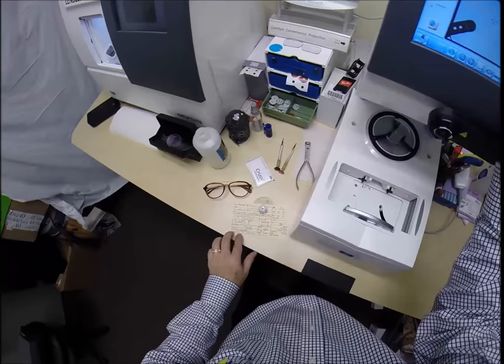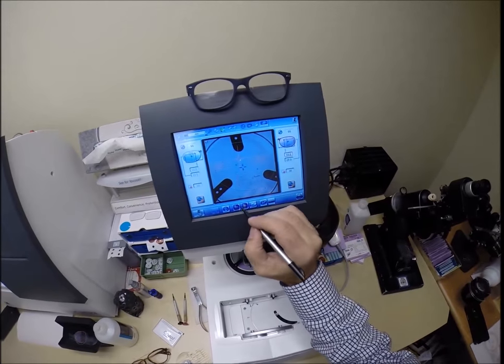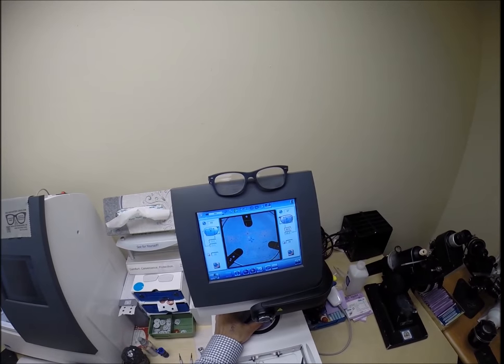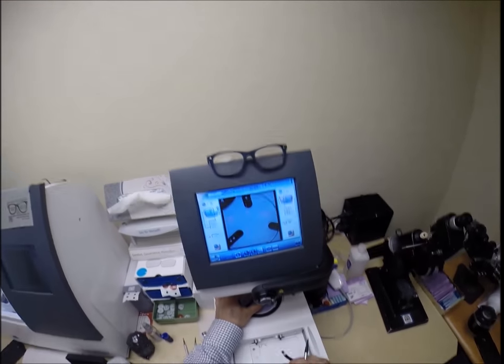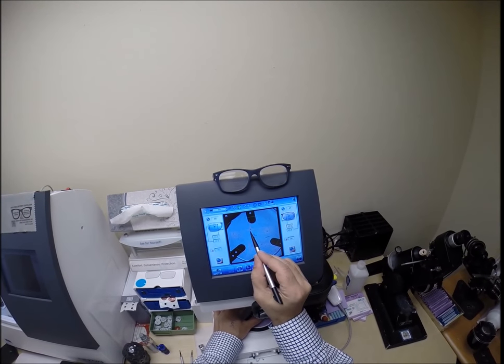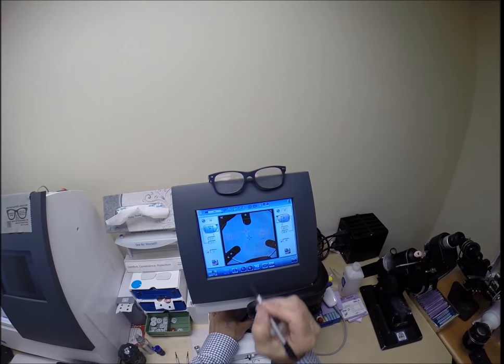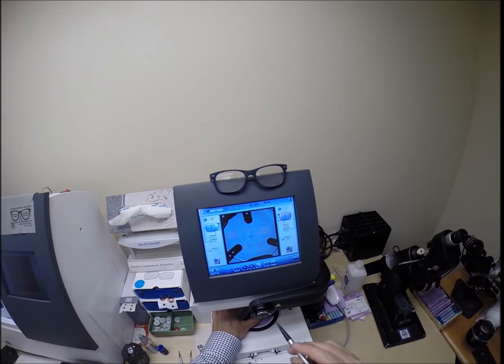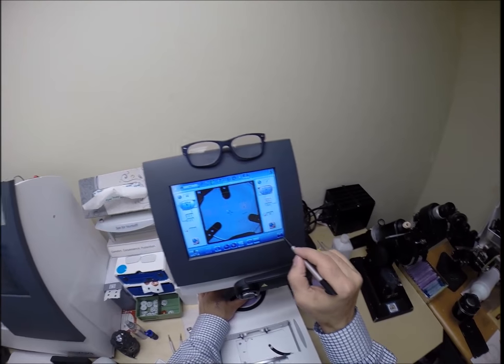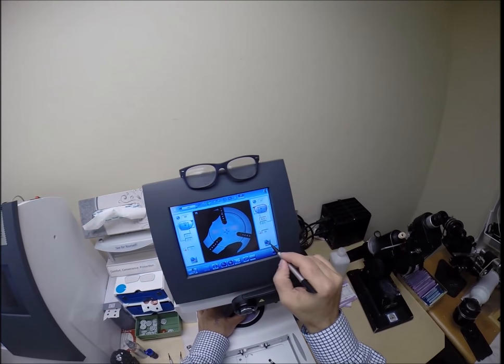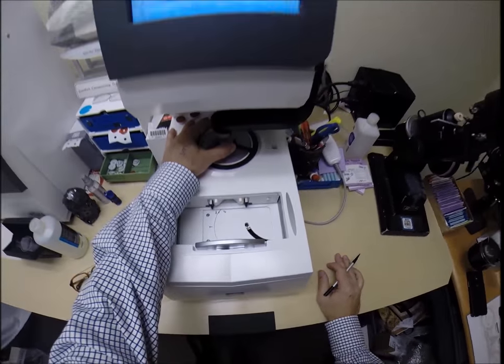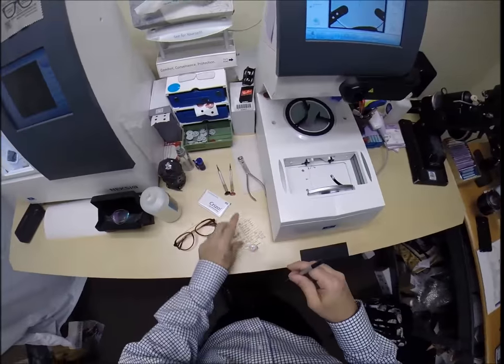Line the magnet up. Your pupillary distance for your left eye is 32. It has mirrored your right from 33. I'm going to hit the tap of the minus button a couple times. Put that there at the optical center. Those other two dots are placed there evenly. It tells me that it's on kilter with your prescription. With yours there's no margin of error. Make sure the lens is large enough. Hit the button. The arm is going to come down and place the block onto the left lens.